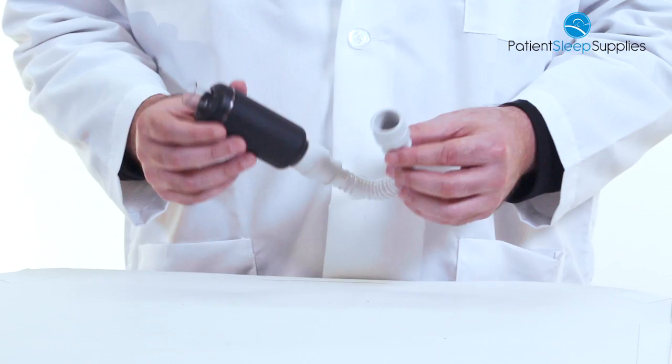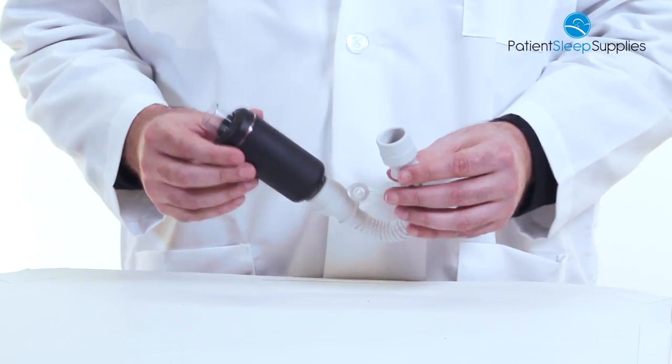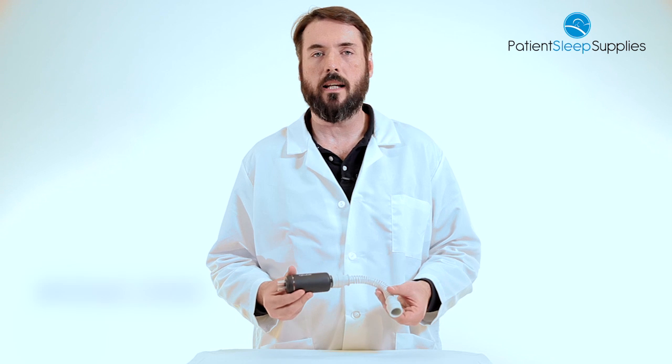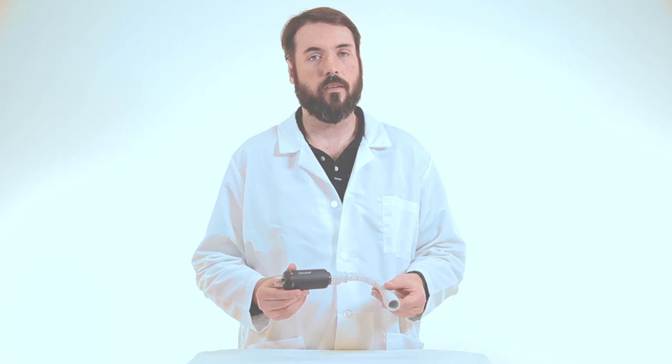Replacement filters, O-rings, and plastic wraps are also available on our website. Again, this is the Q-Tube Inline CPAP Muffler Kit, product HD60-2500. Thank you so much.